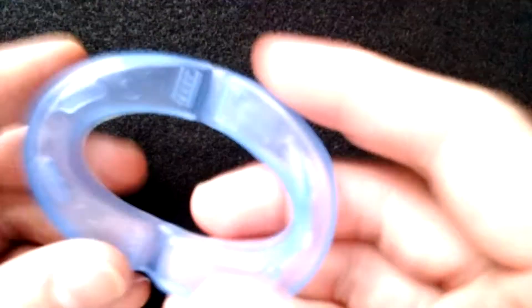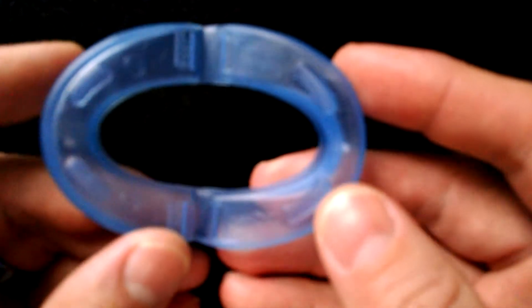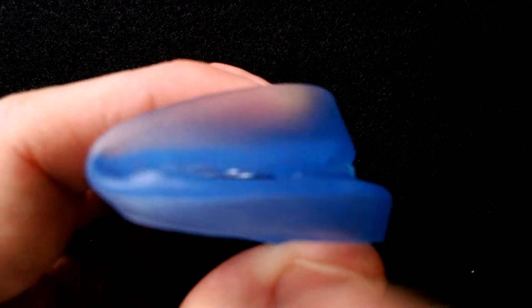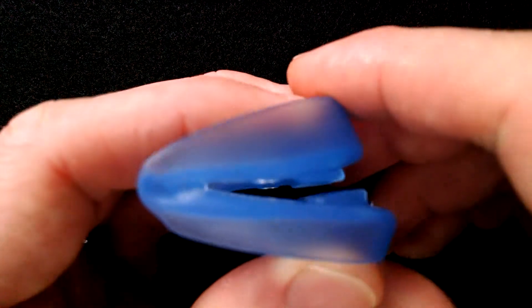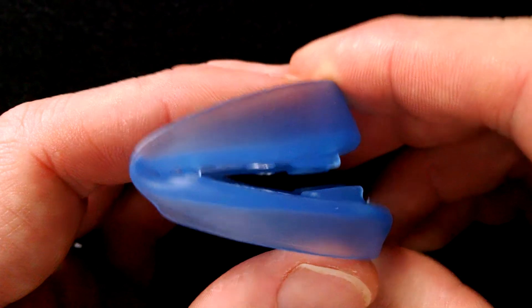Let's move on to the Z-Quiet. This is the Z-Quiet. It is a hinged mandibular advancement device and you can see here that it's hinged obviously back here at the back and this allows you a little bit of freedom with your mouth. You can speak if you want to and perhaps take a sip of water, that sort of thing.